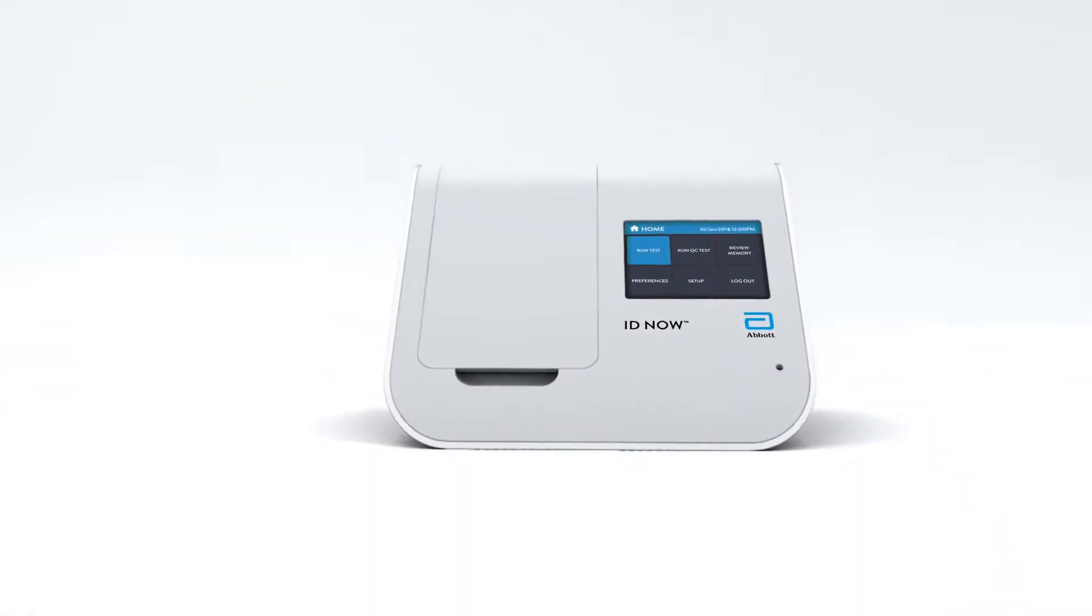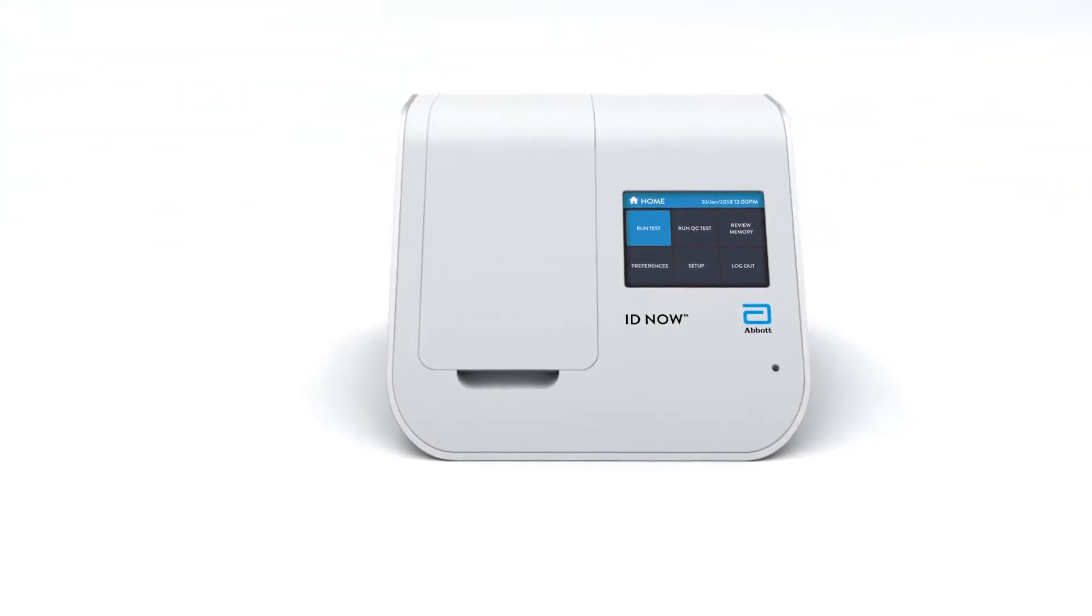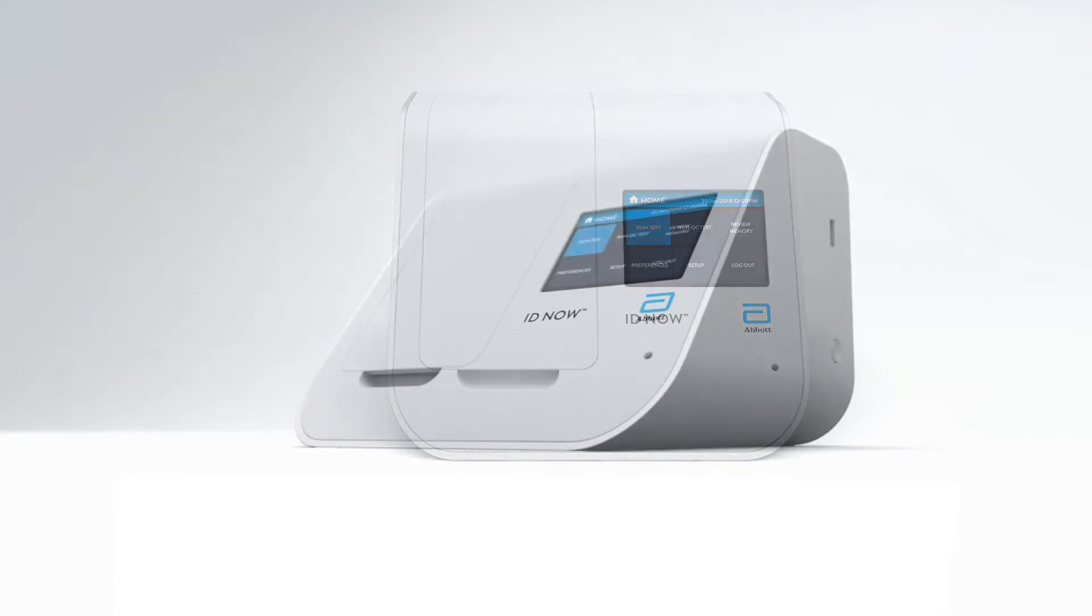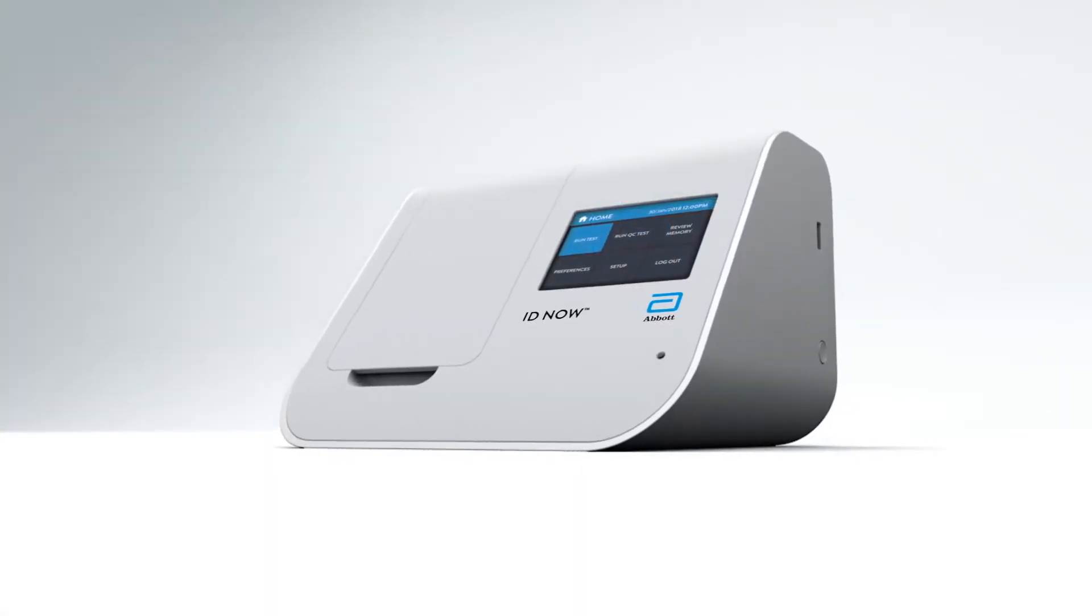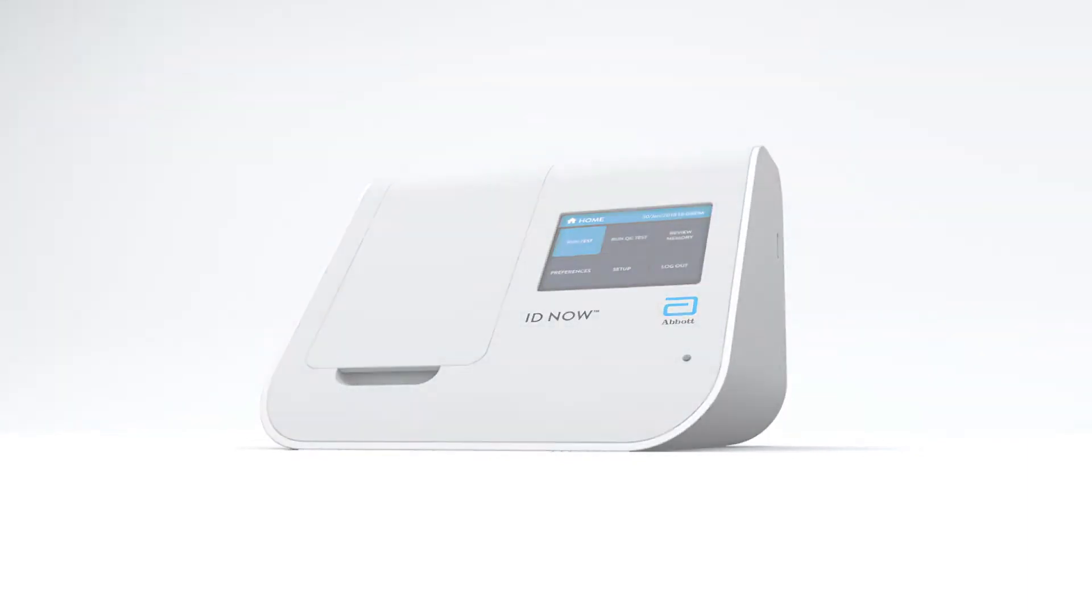There's no complex, drawn-out, off-site laboratory process with IDNow. Only clinically meaningful results delivered significantly faster. The IDNow Diagnostic System. Molecular in minutes.